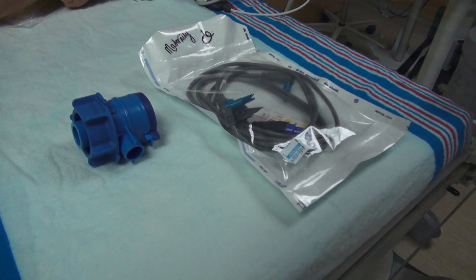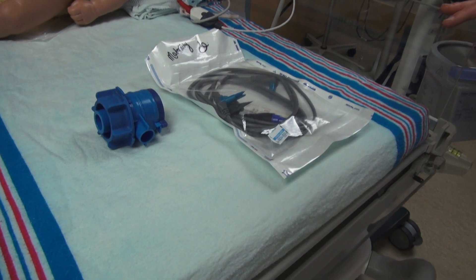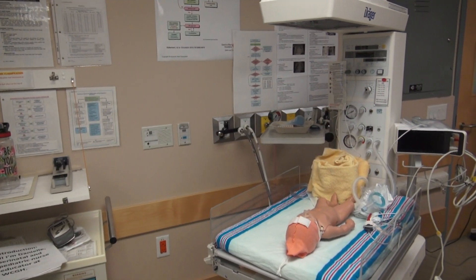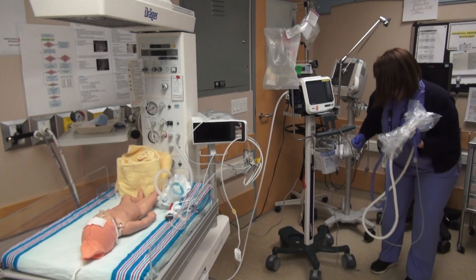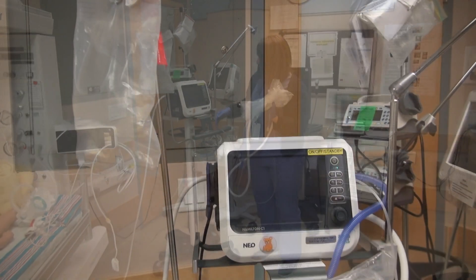Note: we have one pink temporary disposable expiratory valve as backup, located in the nursery. Please remind MDRD that the expiratory valve and membrane must be returned ASAP for next setup. The outside of the Hamilton ventilator can be wiped down with Virox wipes as well, as needed in between patient use.